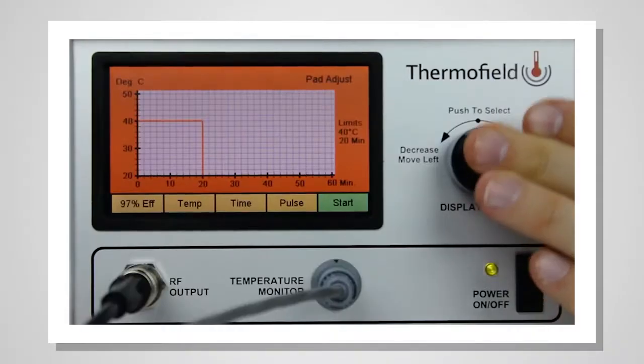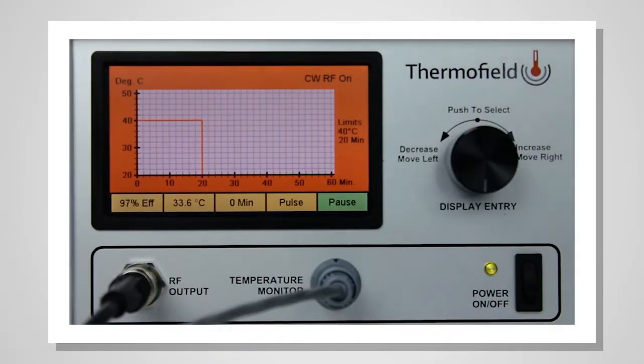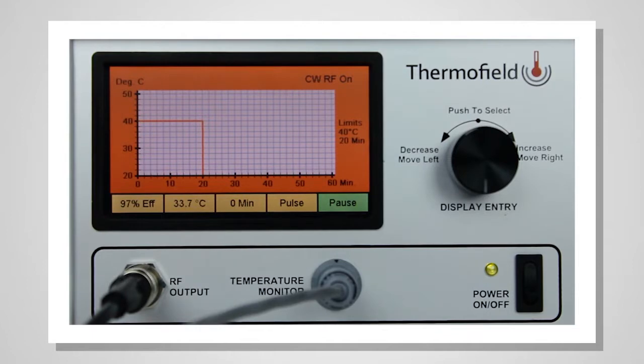To begin treatment, press the knob to select START. As the treatment progresses, patient temperature values will be displayed as tick marks on the graph and also in the TEMP pane below.